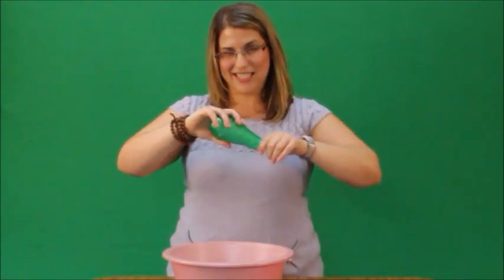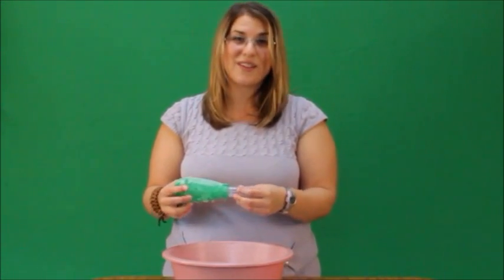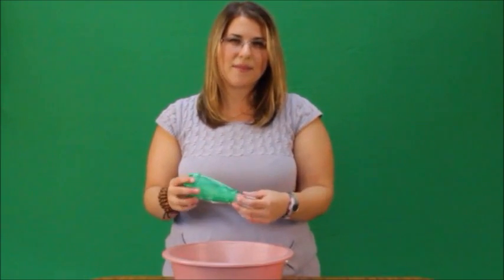To clean this acapella, you take the mouthpiece off and then put both pieces into a warm basin of warm soapy water. Let it sit in the basin for about five to ten minutes. Then head over to a sink, rinse them out, put them on a towel, and let them dry until you're ready for your next use. Make sure that they're dry and that you get all the soap off before you do this.